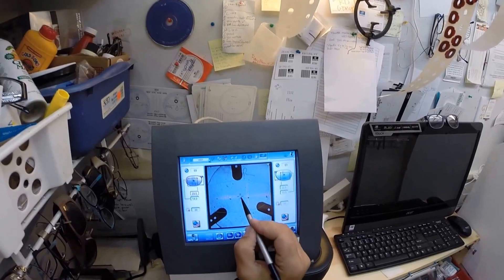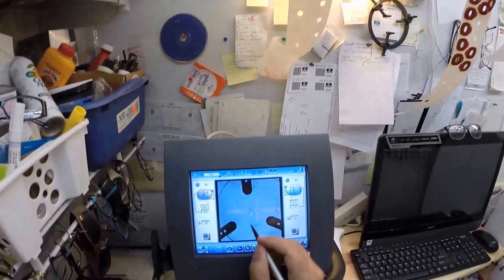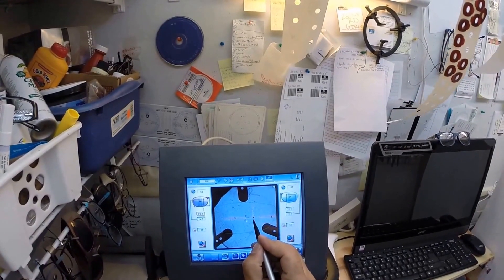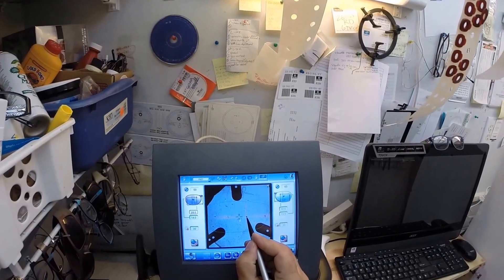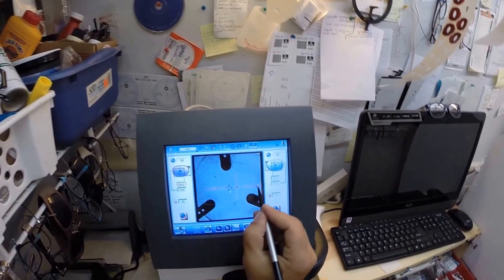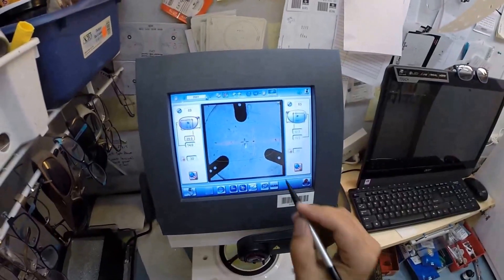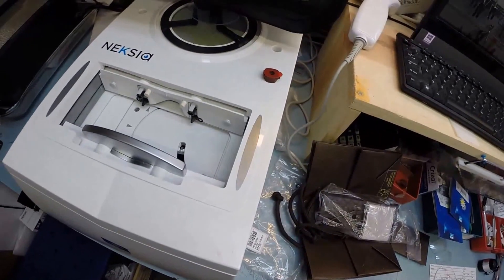So this dot in the center is your optical center. I'm going to get this lined up. Now this blue cross is the geometric center of your frame. If you were to measure both vertically and horizontally, when you found dead center that would be where that blue cross is. However, your eye is just inset from there. So I'm going to put that center dot, your optical center, right there inside that. Now the other two dots are lining up on that orange graph and it tells me that it's oriented in there just perfectly. I'm going to hit the button. The block is going to come down and be applied to your right lens.